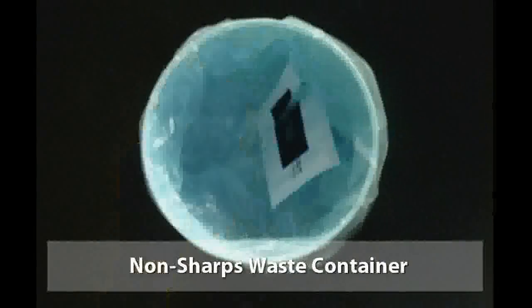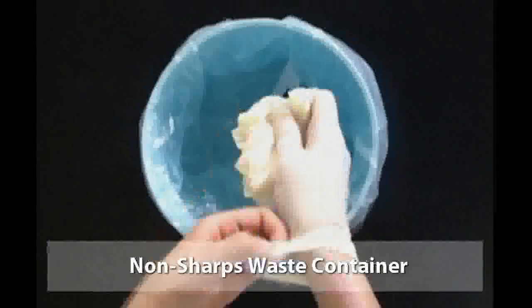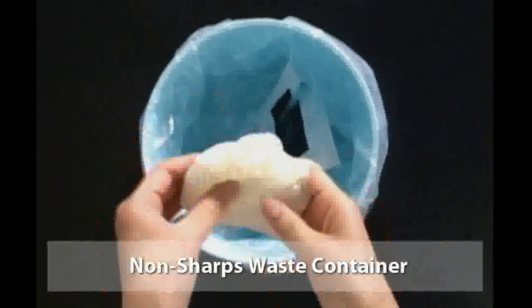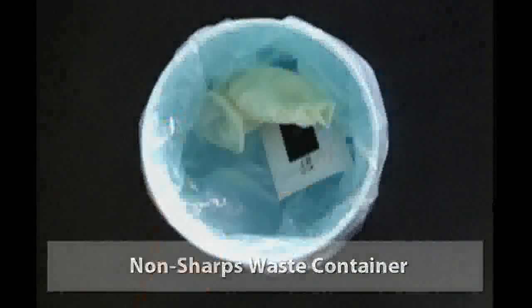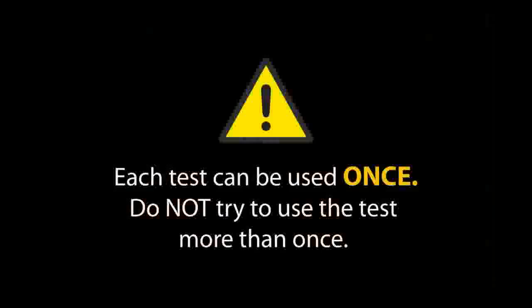Dispose of test materials such as test device, gloves, alcohol swab, desiccant, and packaging in a non-sharps waste container. Record the test results. Now remember, each test can be used once. Do not try to use the test more than once.